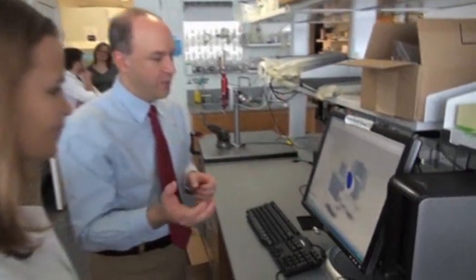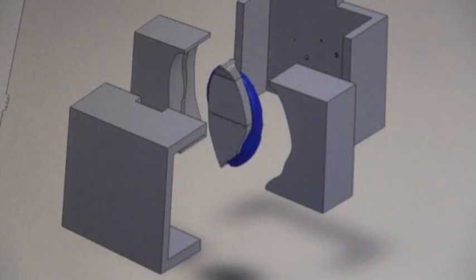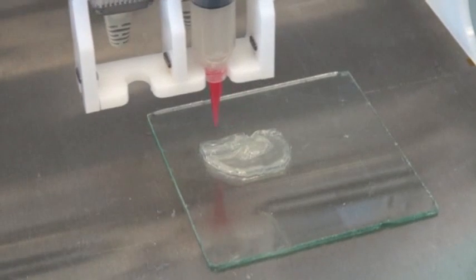What we're seeing here in blue is the 3D image of the ear that we've obtained from the head scan. This could really be the first example of how we can use tissue engineering technology and medical imaging together to make custom implants for patients.